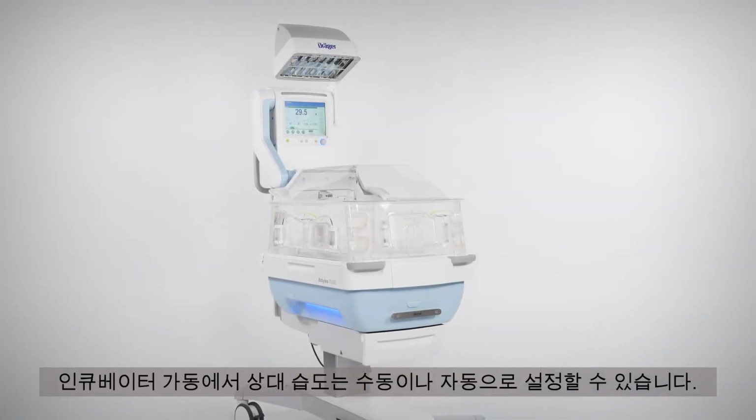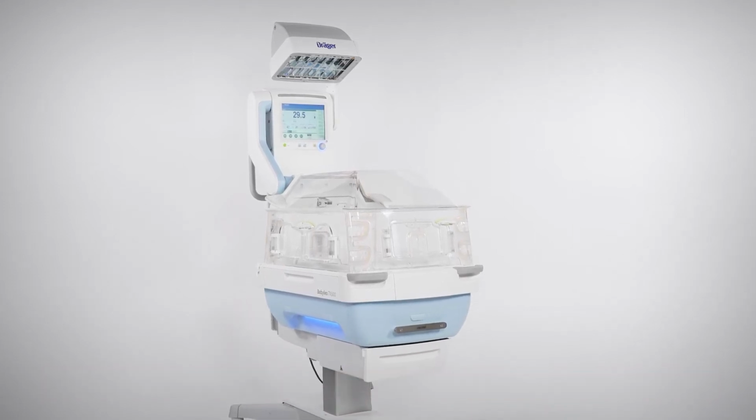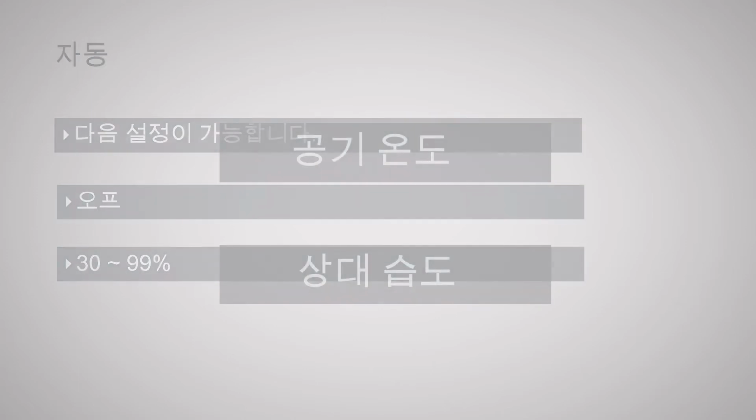In incubator operation, the relative humidity can be set manually or automatically. The following settings are possible: Off, setting from 30 to 99%, Auto. When in Auto mode, the device sets the relative humidity according to the air temperature. For example, if the air temperature increases, the relative humidity increases correspondingly.